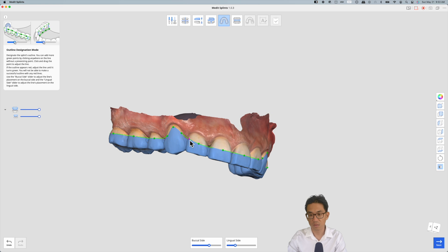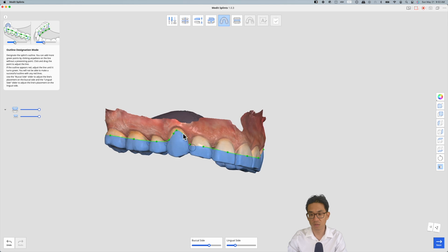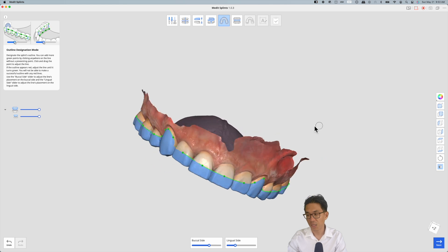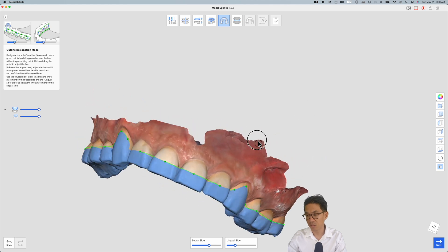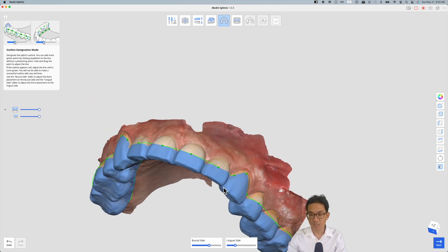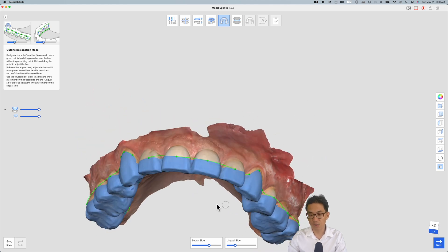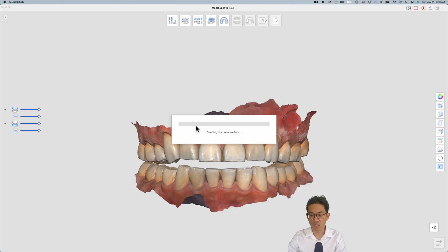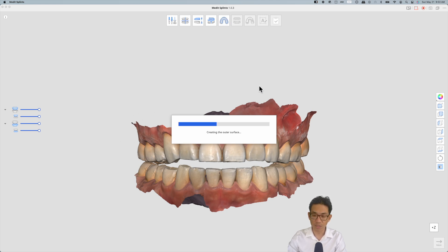I can get a bit more detailed. So pretty straightforward. And if it does error out in terms of when you hit next trying to create the outer surface, you just need to go back and move the dots around a little bit more in any possible problem areas. However, in this case this works well.